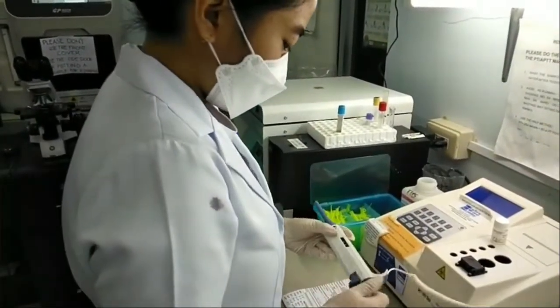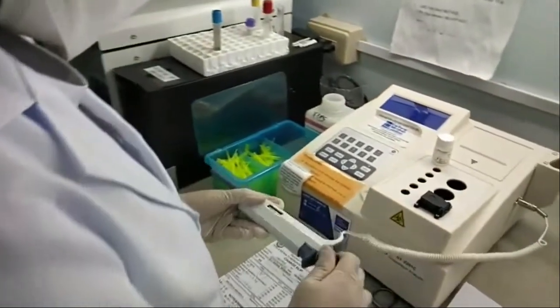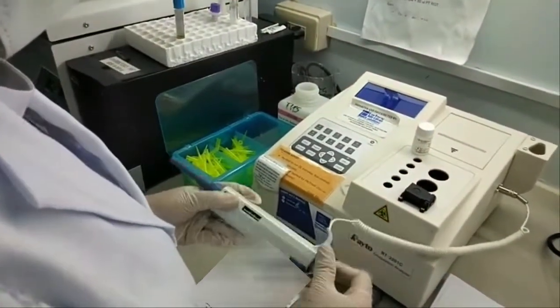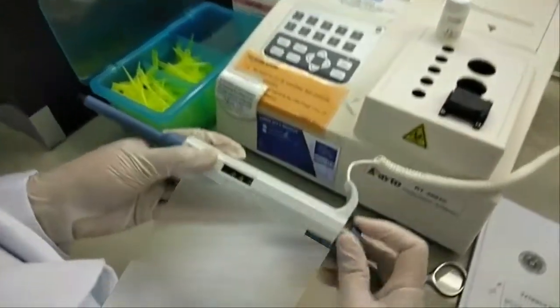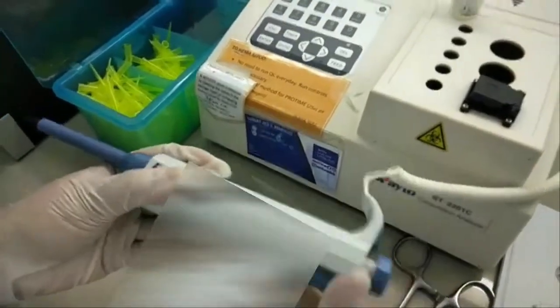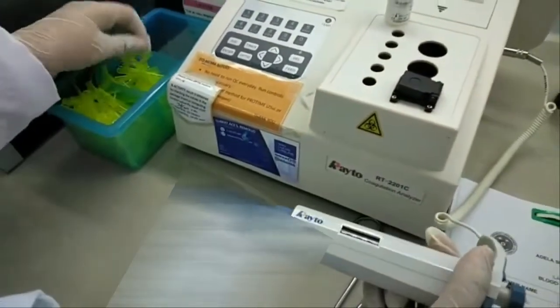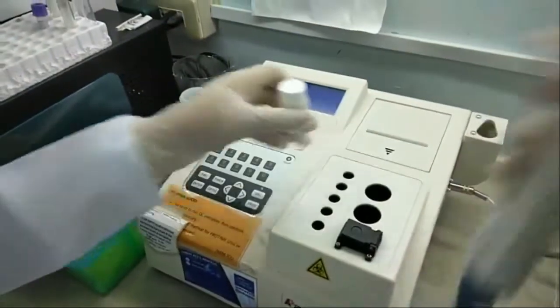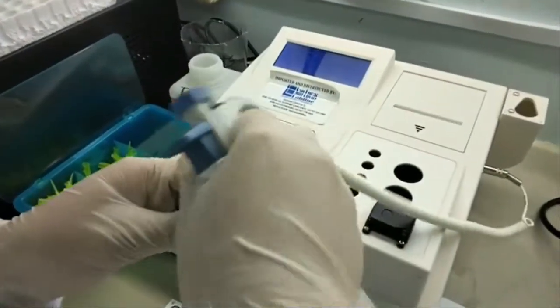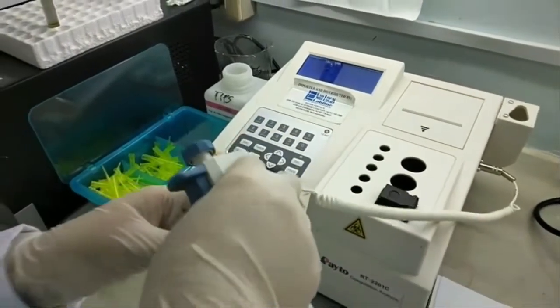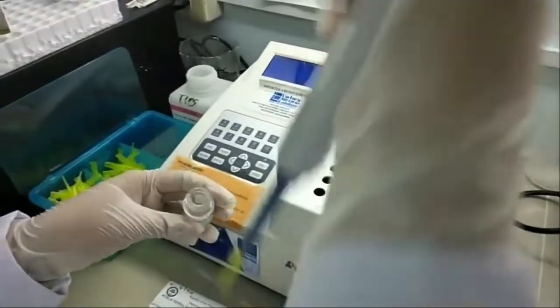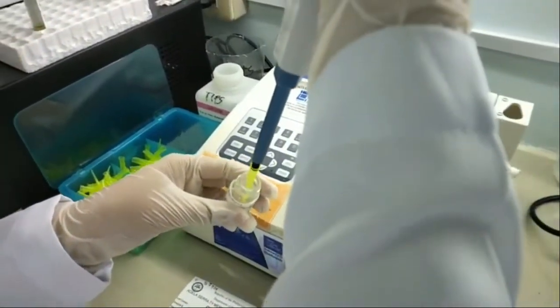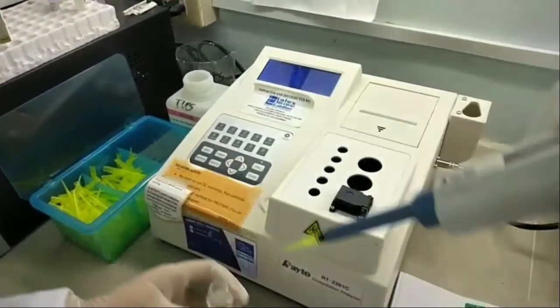Using the same electronically linked pipette, aspirate 50 microliters of the PT reagent.